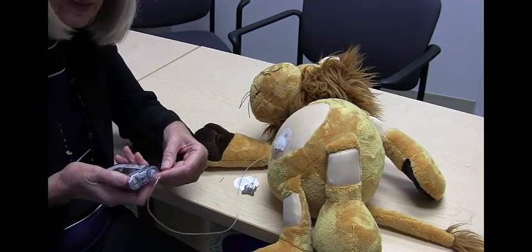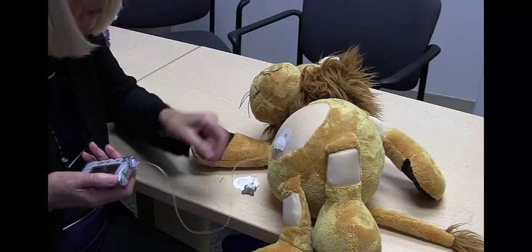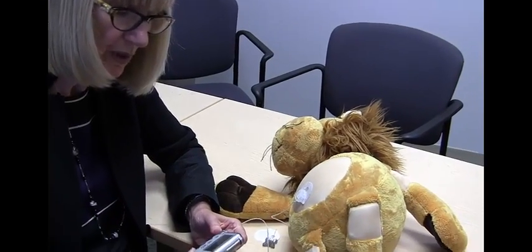So fast acting insulin will flow through the tubing. This allows much more flexibility than giving insulin by injections 3 or 4 times a day. Thank you.